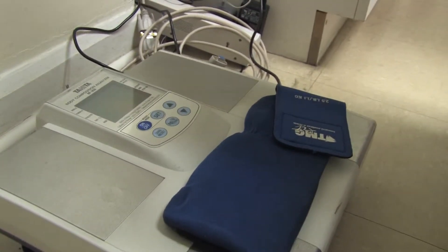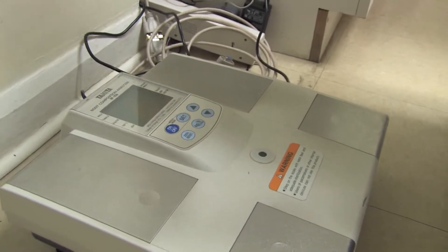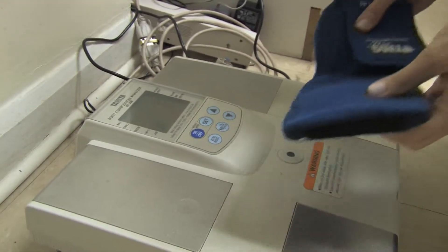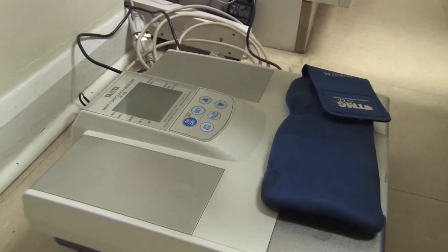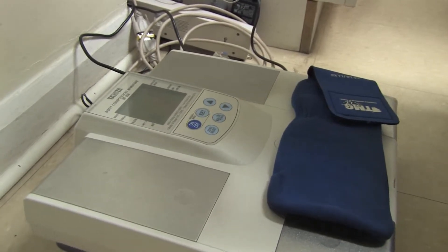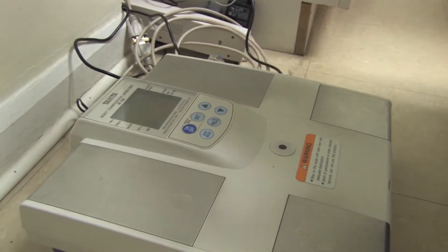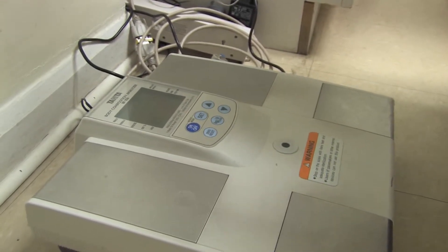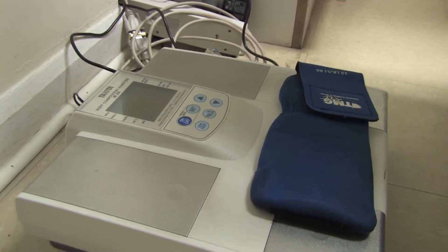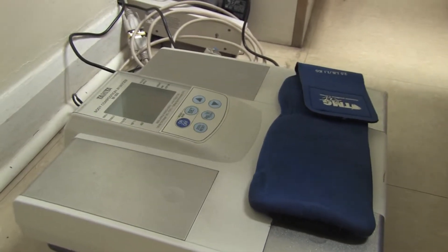It's saying 2.6 again. We take it off, let it zero out, and repeat this process. Placing it on again — it says 2.6, which is great. One more time, and it's 2.6, which is very good. So this scale is calibrated.